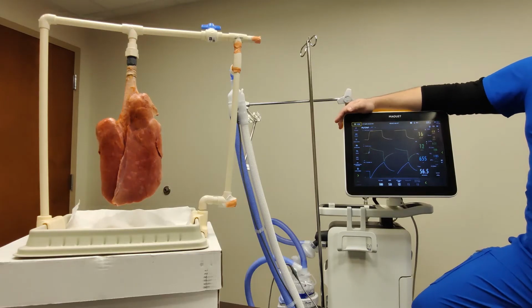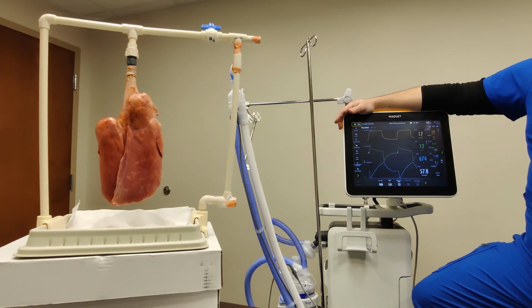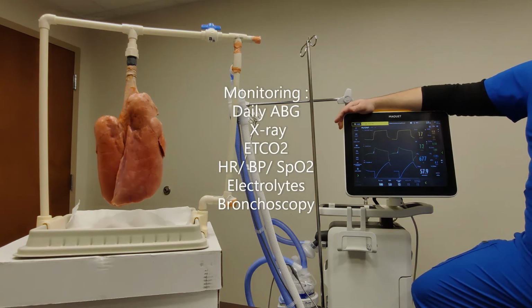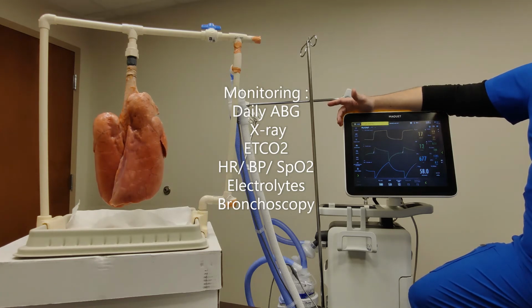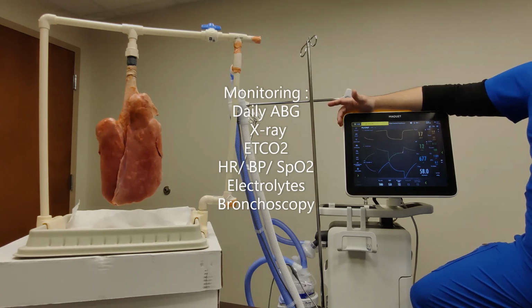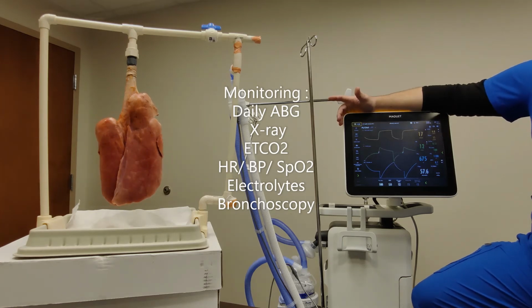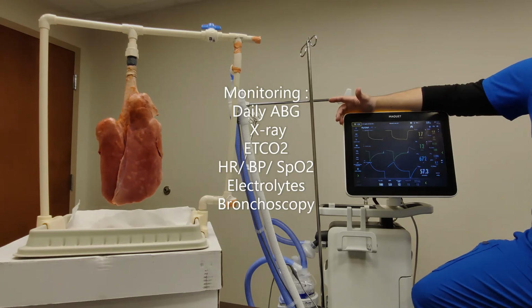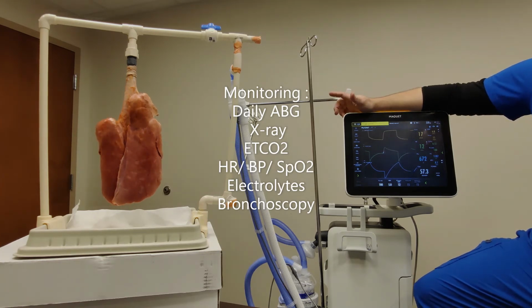Okay, briefly I want to go over when we have a patient that is intubated and being mechanically ventilated, we're going to monitor a couple things. So obviously they're going to be on a continuous monitor. We're going to be looking at heart rate, blood pressure, SATs, respiratory rate, etc. Typically, a daily ABG will be done just to see where they're at, and more often if necessary. End-tidal CO2 is an option, typically done in ER and some of the neuro floors, but is an option certainly on this vent and some of our monitors.